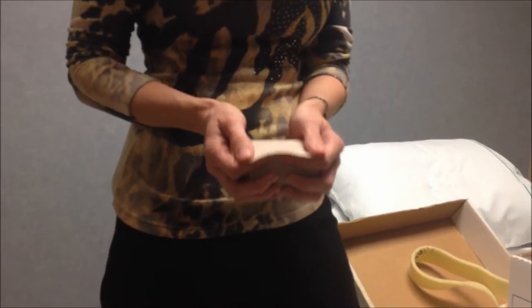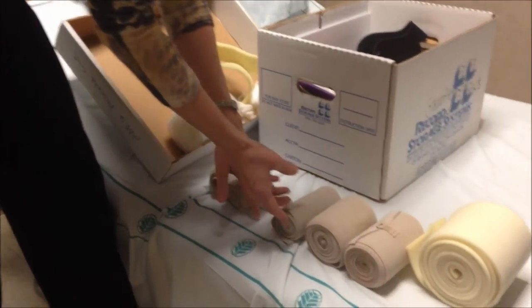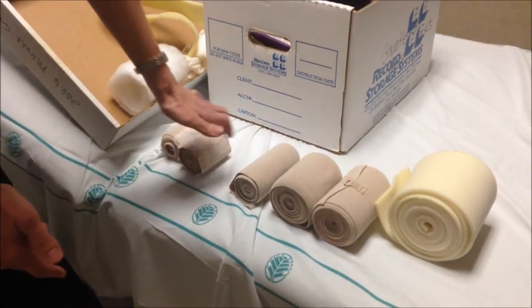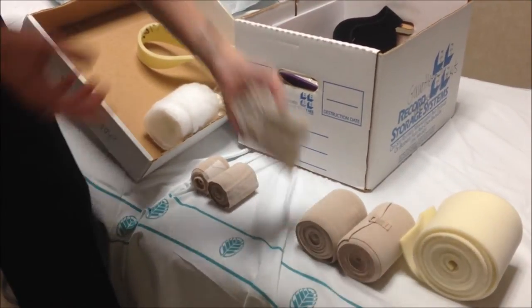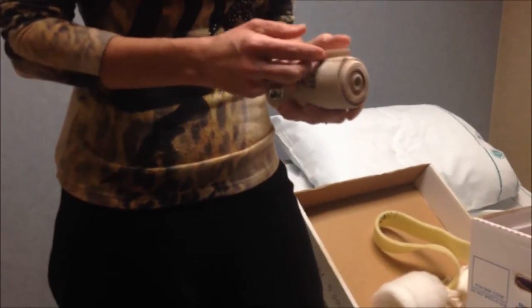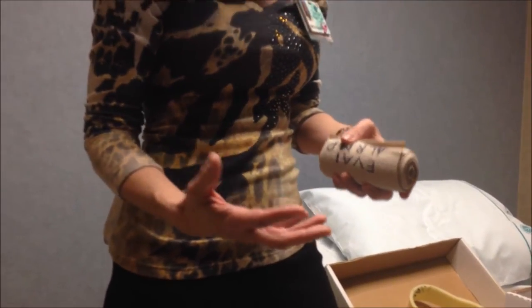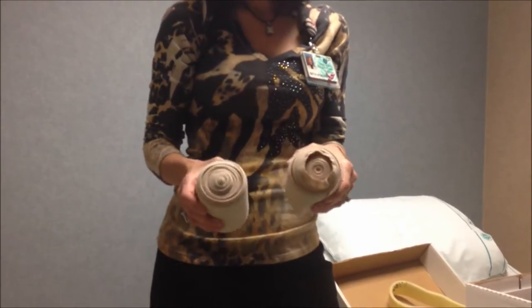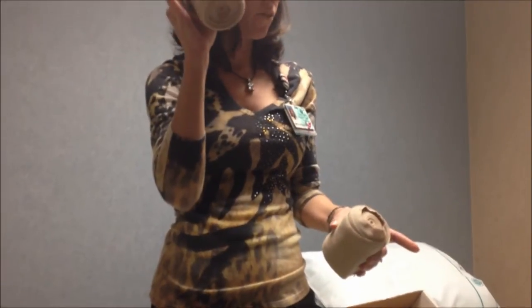When I talk about eight centimeter or six, we're talking about just the width across — so this is eight centimeters across, six centimeters. I don't have my ten with me right now. This is a twelve centimeter across. Most of the bandages — the six, the eight, the ten, the twelve — come in those widths but they're five meters long, so that's your standard length of one roll. When you're doing legs, to conserve cost and not use multiple bandages, these double rolls are nice — they come in ten centimeter and twelve centimeter but are ten meters long, so I can wrap a leg using one layer from the ankle to the thigh.